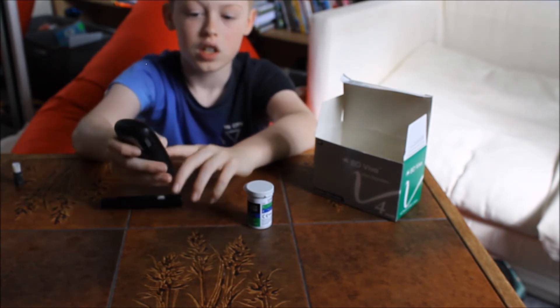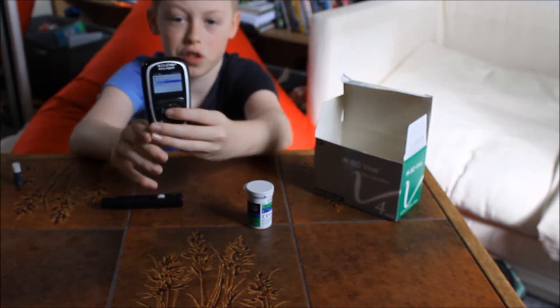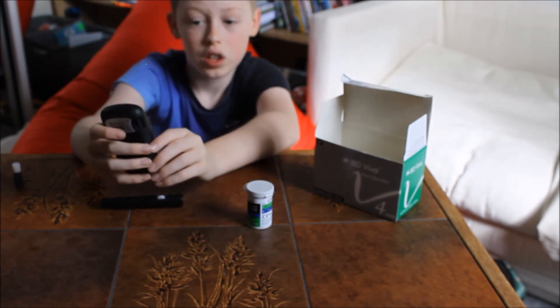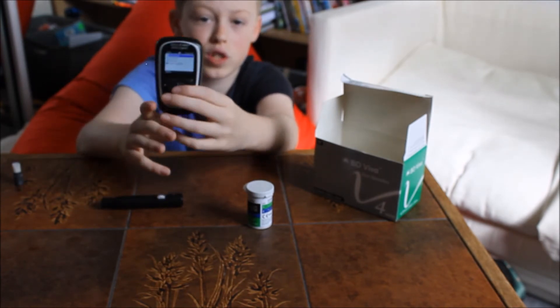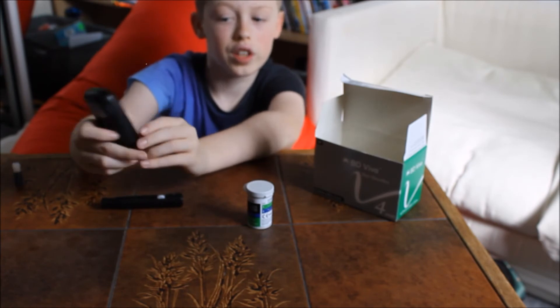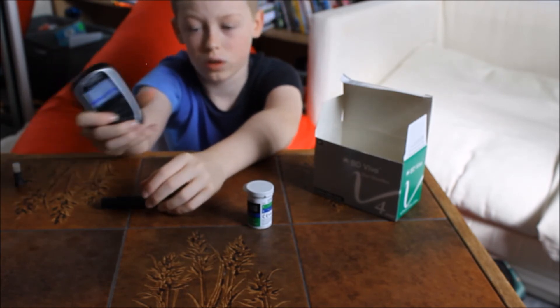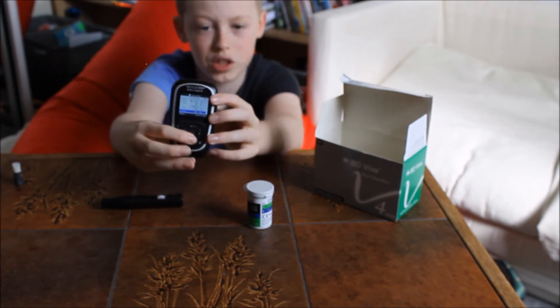To see your data, you just go over to My Data, then view data. You just click on it and you can have a look at all of your BG tests.